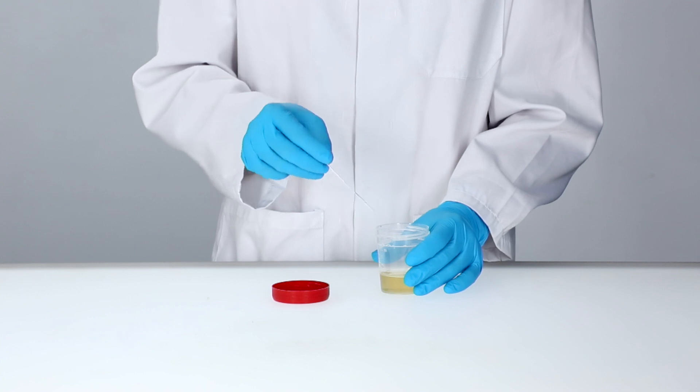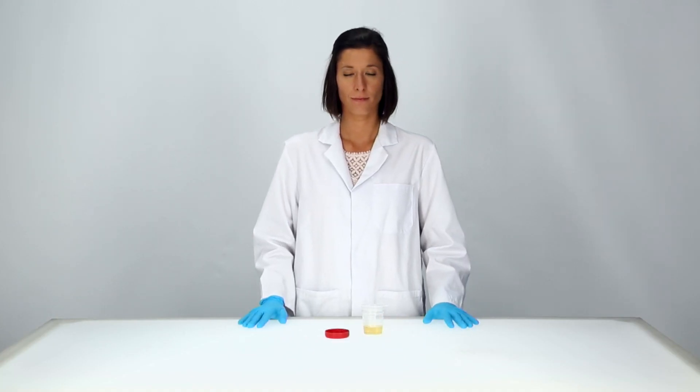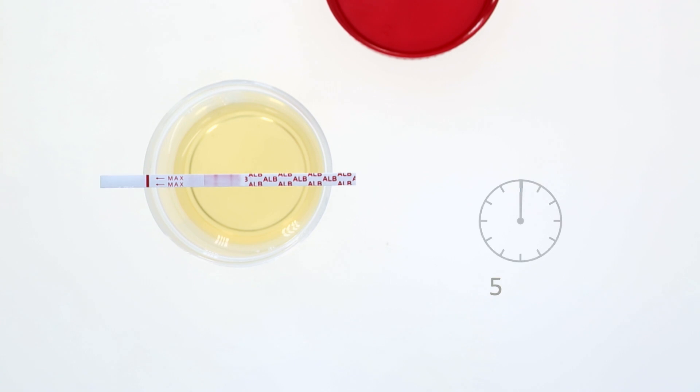Remove the test strip from the sample and place it on a clean and flat surface. Read the result after 5 minutes.